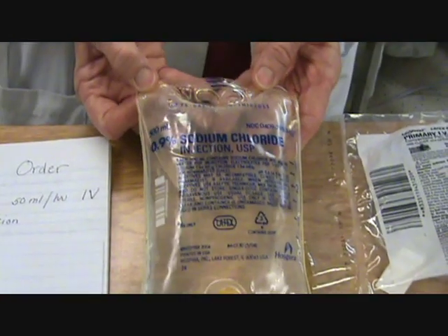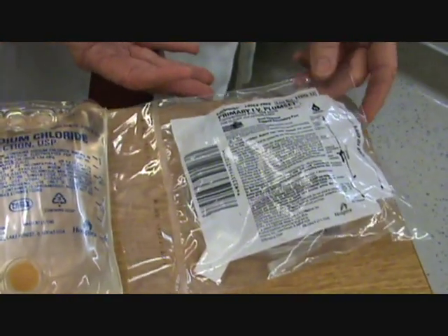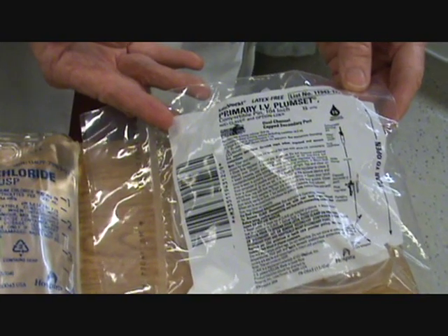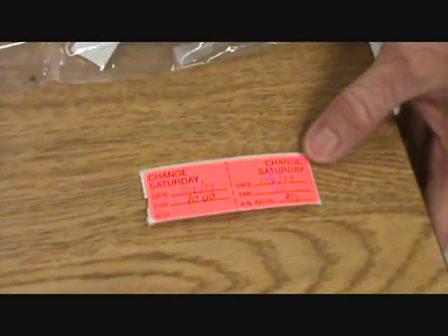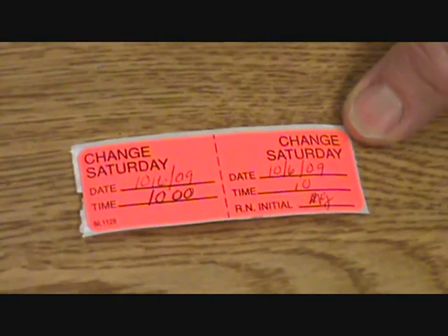Here is our 500 milliliters of normal saline bag ready to hang, and the primary infusion tubing. We have also included the label that goes on the tubing indicating the day on which the tubing was hung.